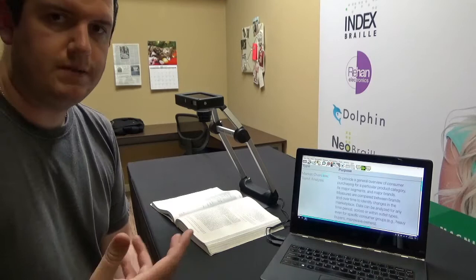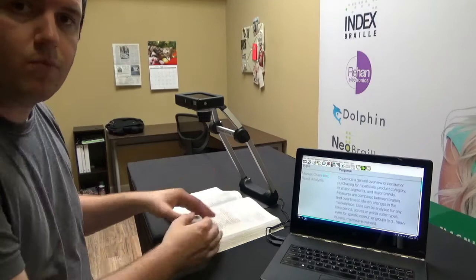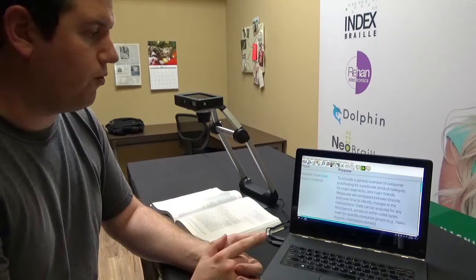So those are your two different types of scanning. Essentially you can scan things underneath here or you can scan things at a distance. But when you're talking about something like a textbook where you have it laid out and you're scanning two pages at once you might want to break these pages up or you might want to be able to capture multiple images or multiple scans at one time as well. And this can do both.